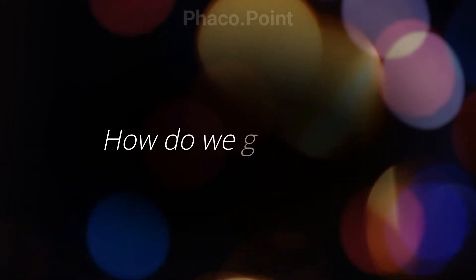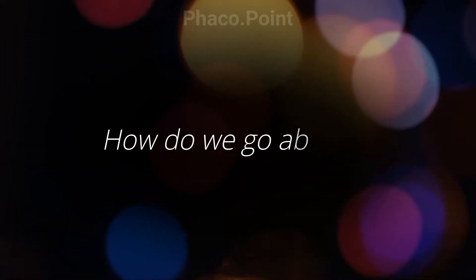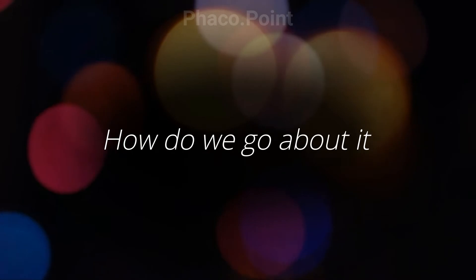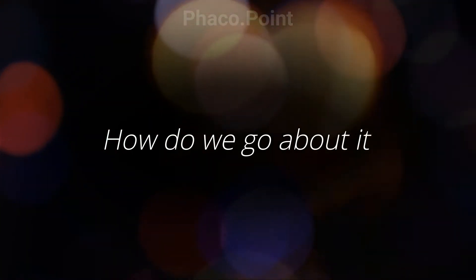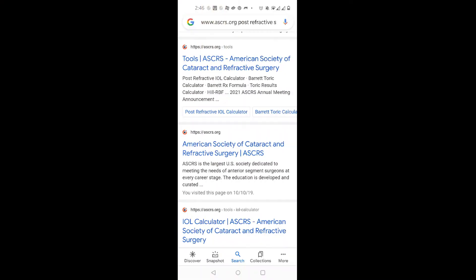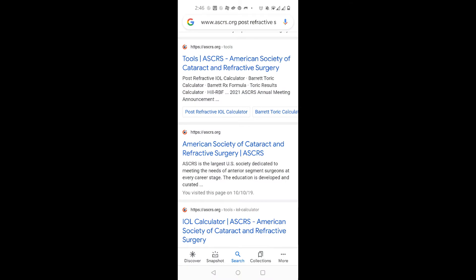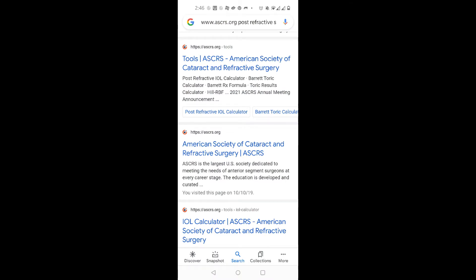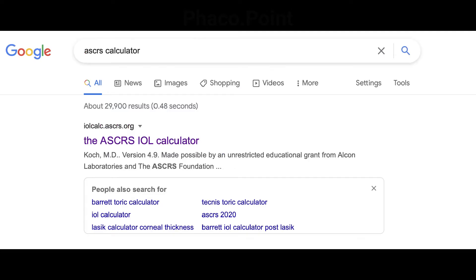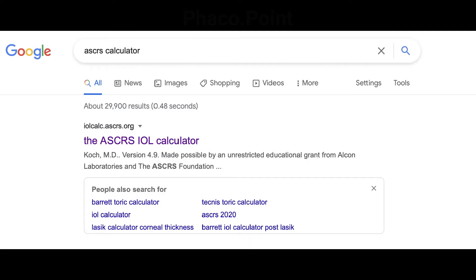This video aims at improving your understanding of how to work up a patient who's had a previous radial keratotomy and who presents desiring cataract surgery. At the outset, go to Google and type ascrs.org and also type in post-refractive surgery calculator.